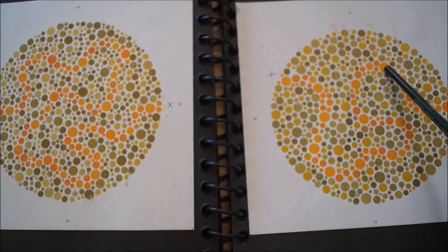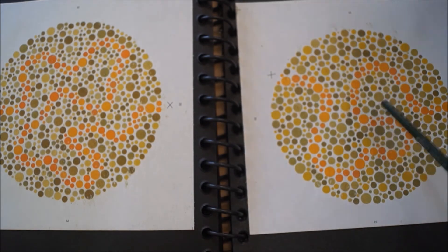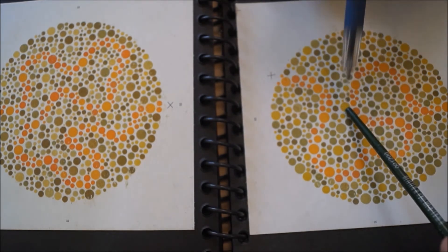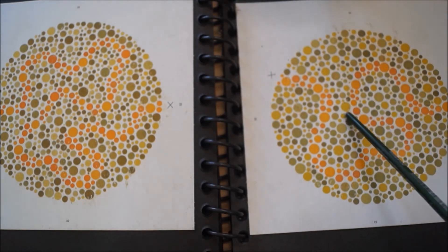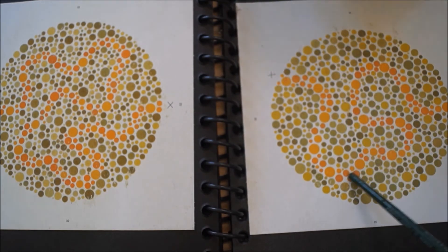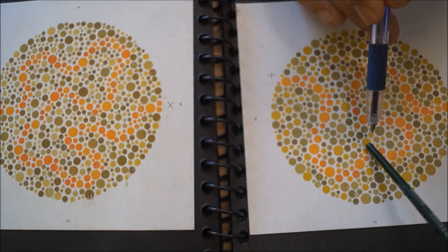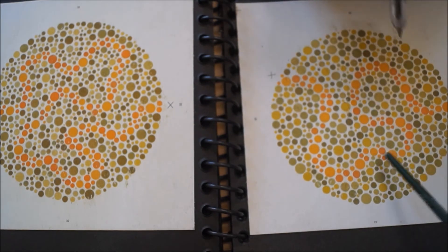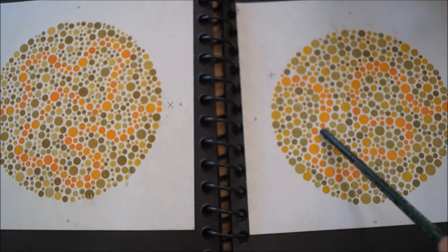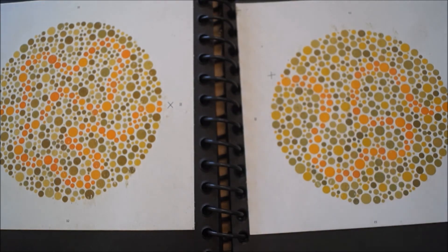Like on this page — see this particular dot. When he was re-verified, and again re-verified, he is assuring that that dot is included in the pattern. But that is not correct.